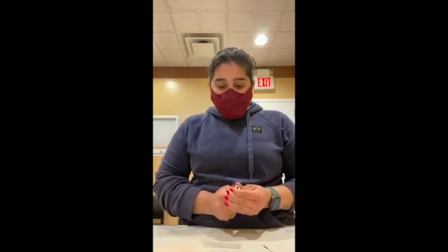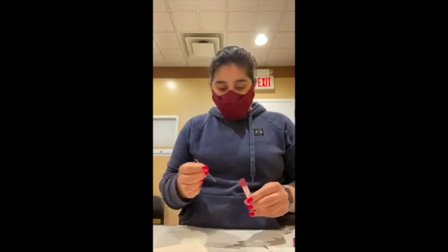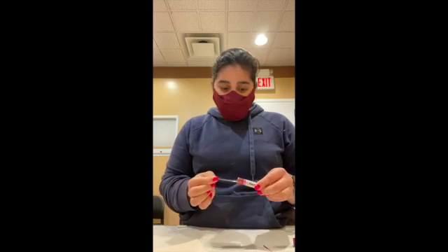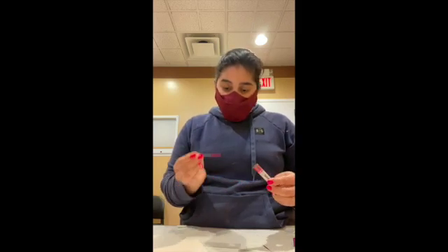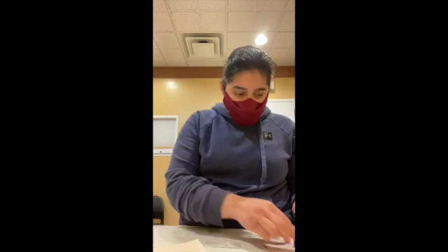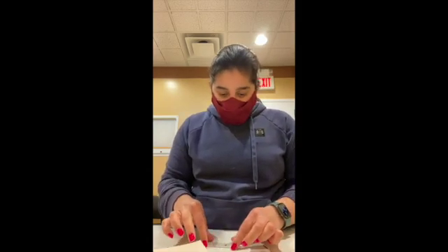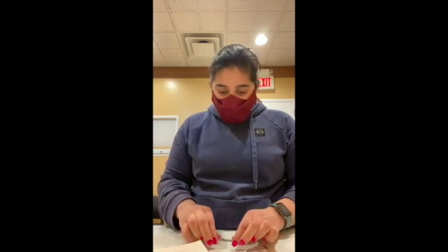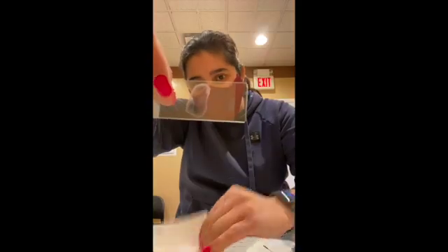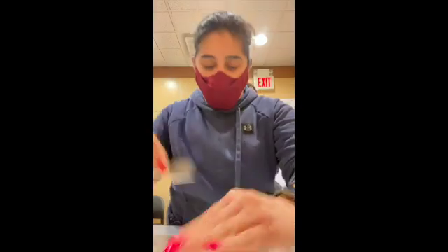So normally dogs shouldn't have any heartworm or microfilaria in the blood. So all you need is a little dot of blood. And your cover slip goes right over your blood film, and I'll spread it out. I don't know if you can see. I don't know if that makes it better or worse. There you go. I'll spread it out.